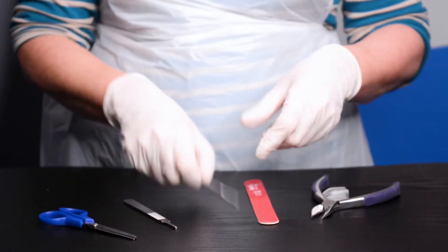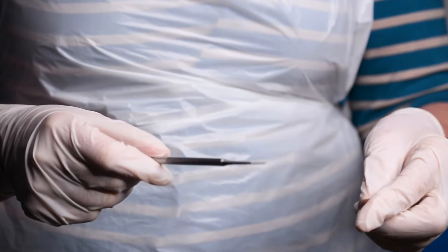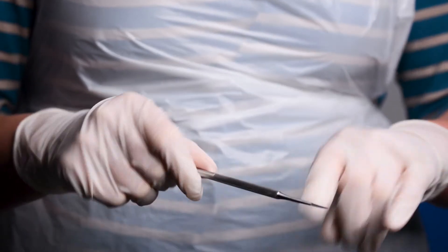The black file is manufactured from high-grade medical steel with precision-engineered teeth for quality and consistent filing.